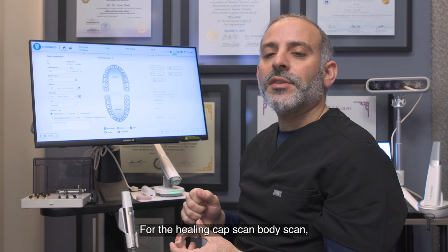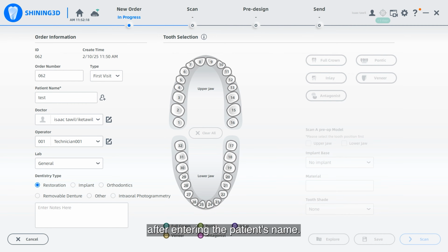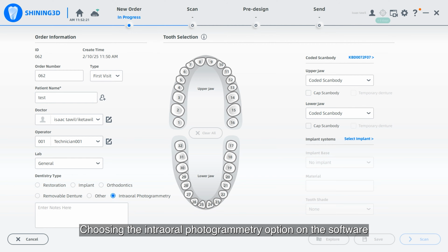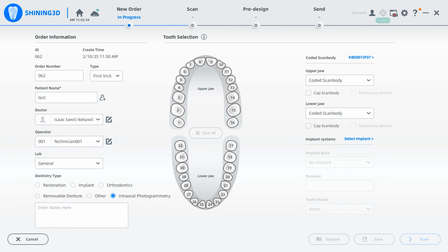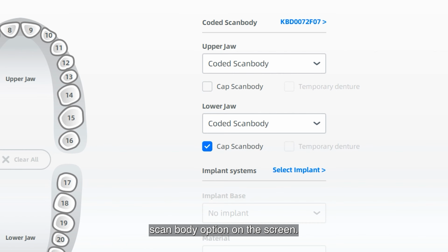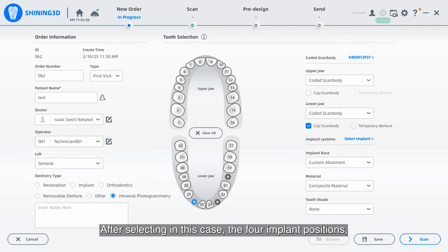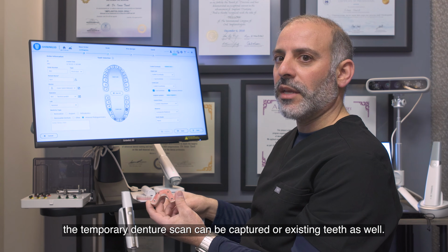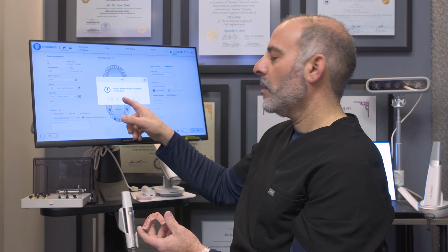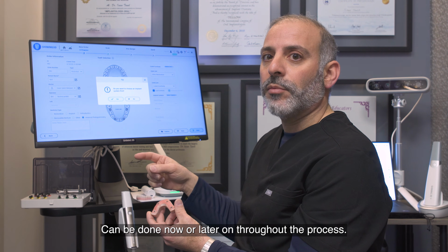For the Healing Cap Scanbody scan, a slightly different method is selected. After entering the patient's name, choosing the Intraoral Photogrammetric option on the software, and making sure to select the Cap Scanbody option on the screen. If a temporary restoration is desired, one can be done as well. After selecting, in this case, the 4 implant positions, the temporary denture scan can be captured or existing teeth as well. Choosing an implant system is optional, can be done now or later on throughout the process.